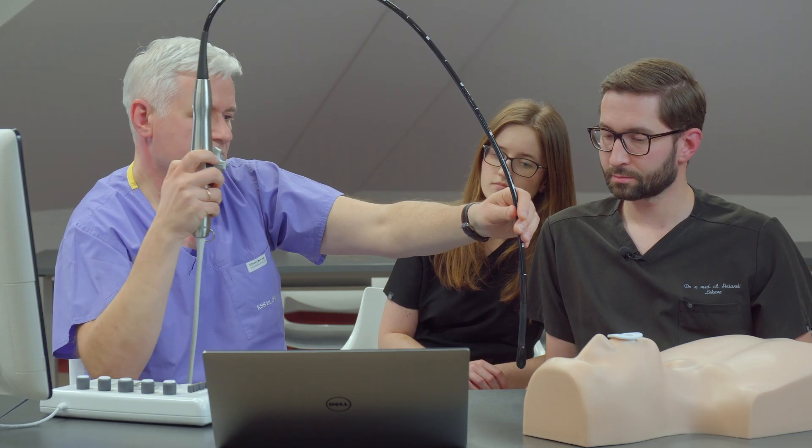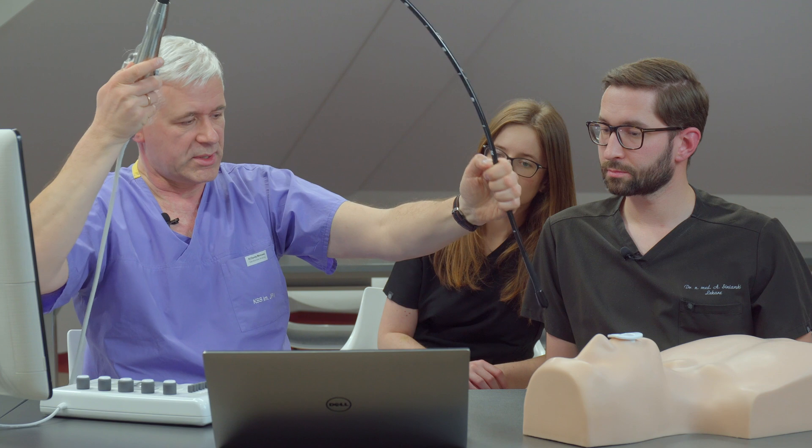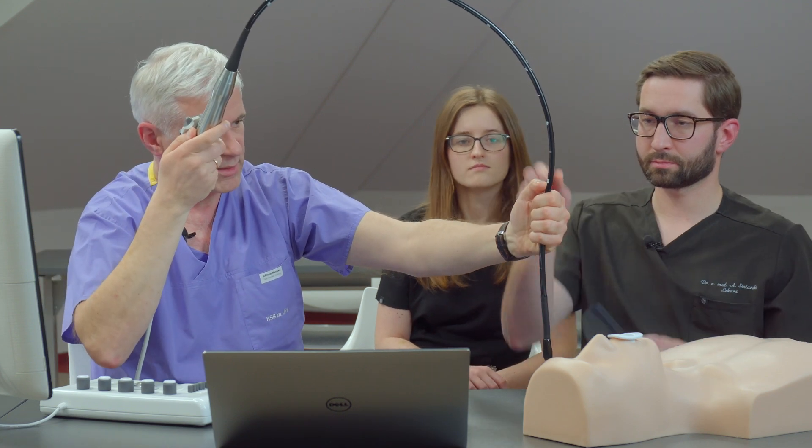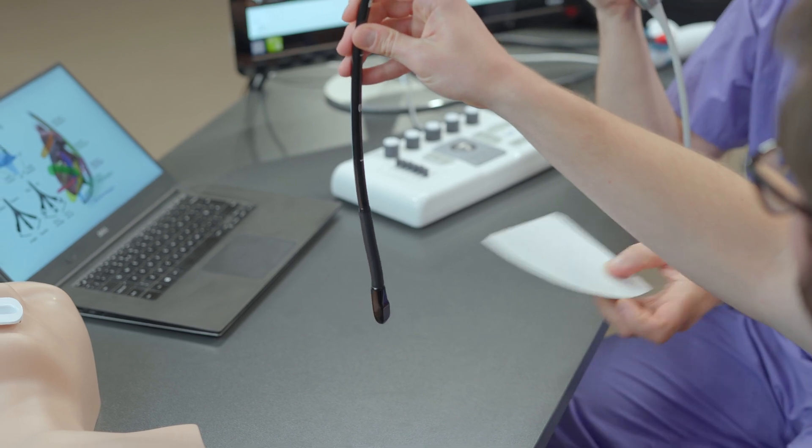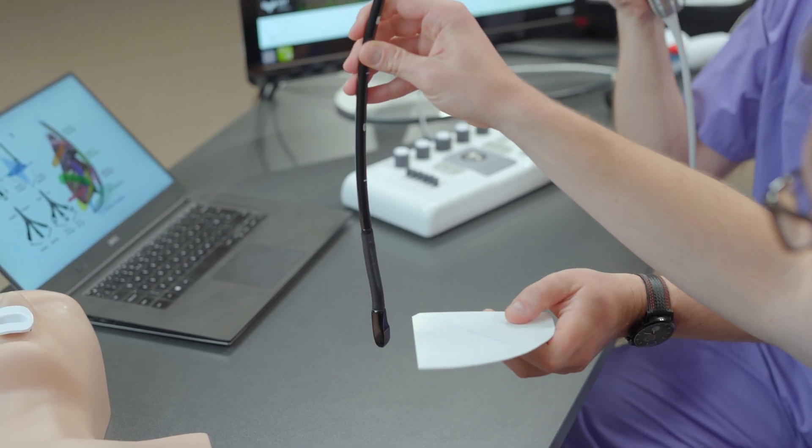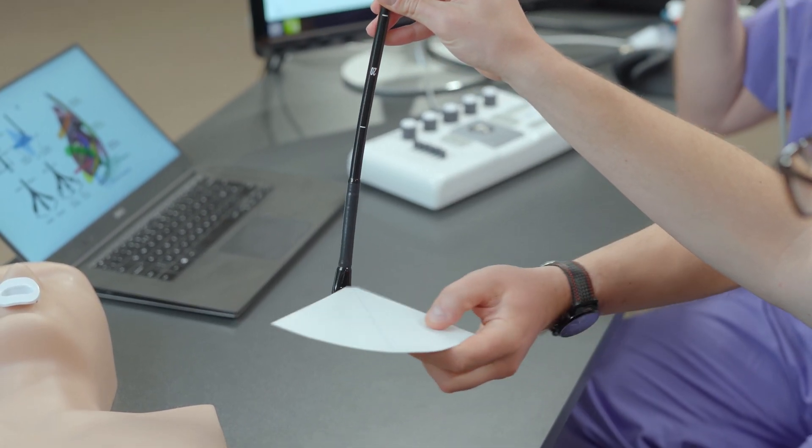But most importantly, we have another one. Can you keep it with your right hand maybe? Here I just prepared this little sector, which resembles the echo sector. We have to rotate it towards the camera here.